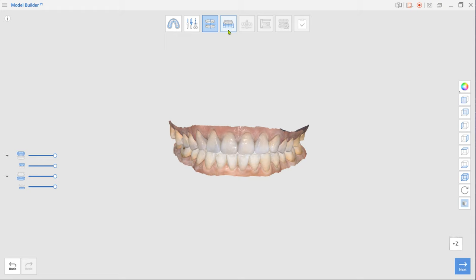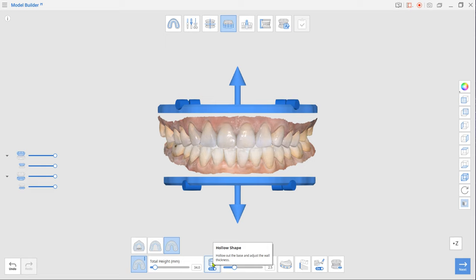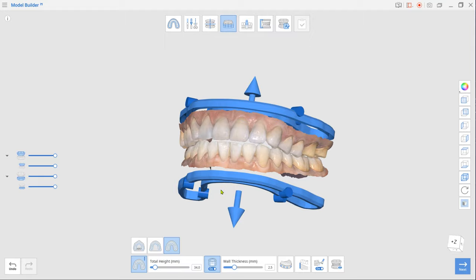Next is Base Creation Mode. Drag arrows up or down to adjust the base height and select Plateless Mode as the base type in the toolbox. To minimize consumption of resin material during printing, leave the hollow shape option on.